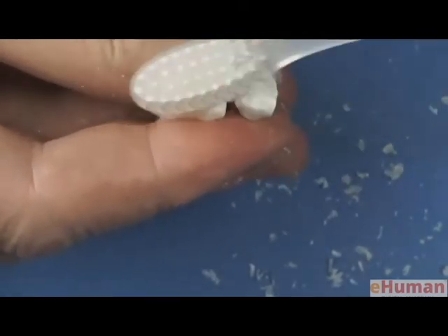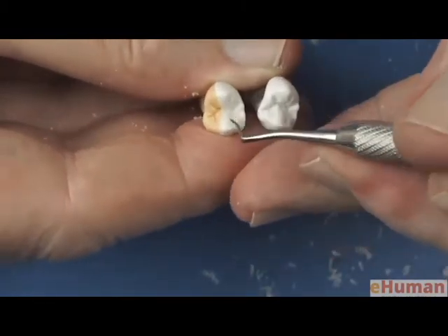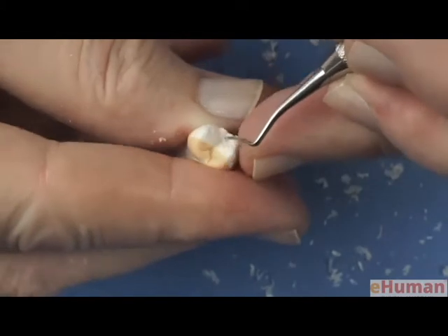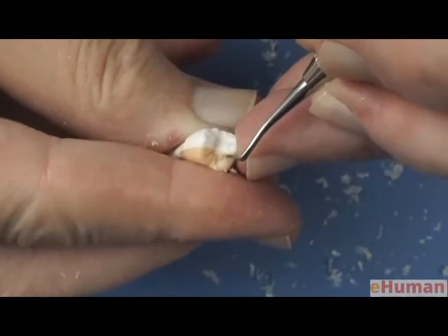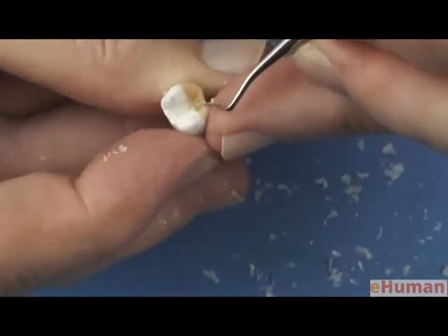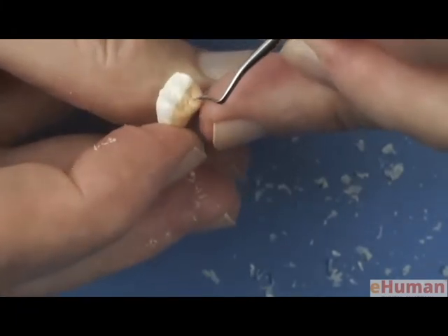And then we can brush those off. And you could see they're a little deep and artificial, but that's where we come back with our carving instrument and we round over the edges of each of those grooves. And you blend the surfaces into each other, because each one of these grooves separates a ridge. And almost all ridges on all teeth are slightly convex. They're not concave. And so we just round those over, leaving the little peak on the ridge between the grooves.